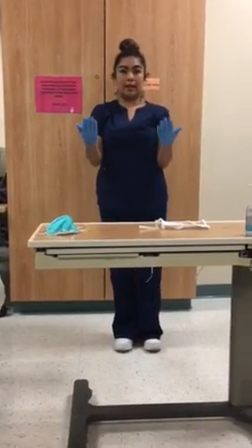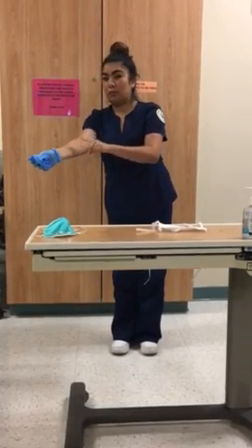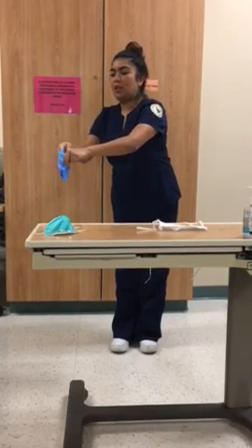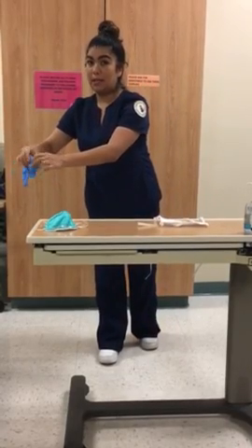Now I'm going to go ahead and dispose of my gloves away from me, just like this. You put your finger underneath, away from me, and you dispose of your gloves in the proper container.